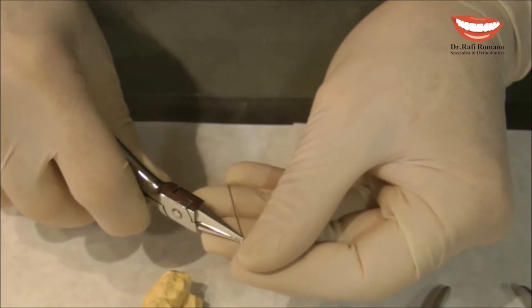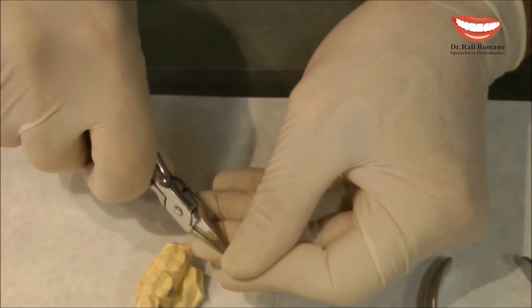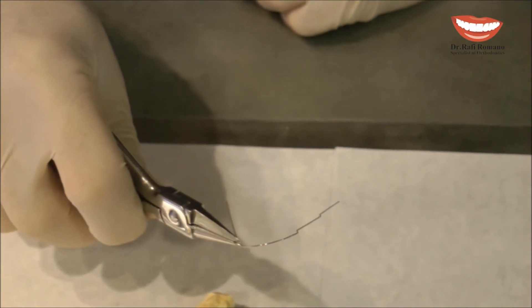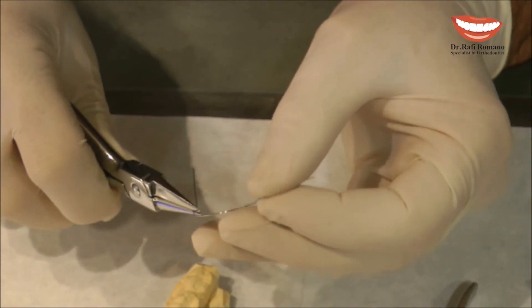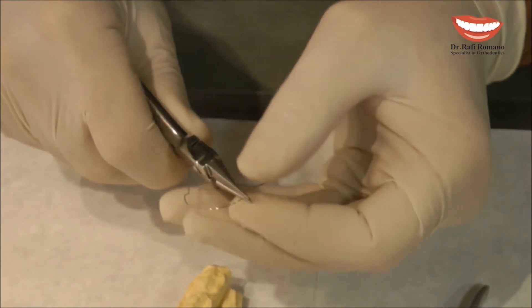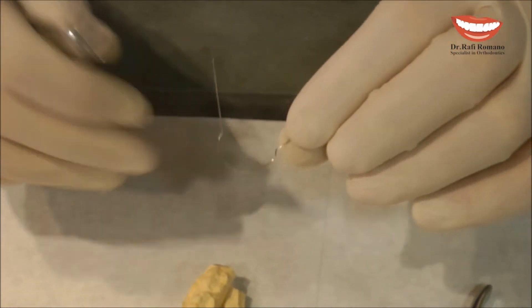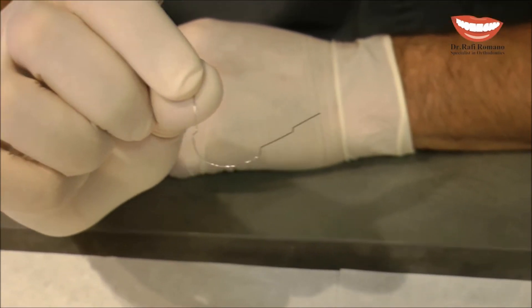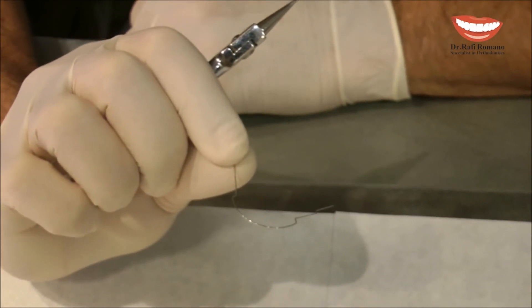So now all the wire is tilted up in this area. I can go now to the other side and tilt it back down. So I will have now a shift in the wire to correct the vertical dimension.